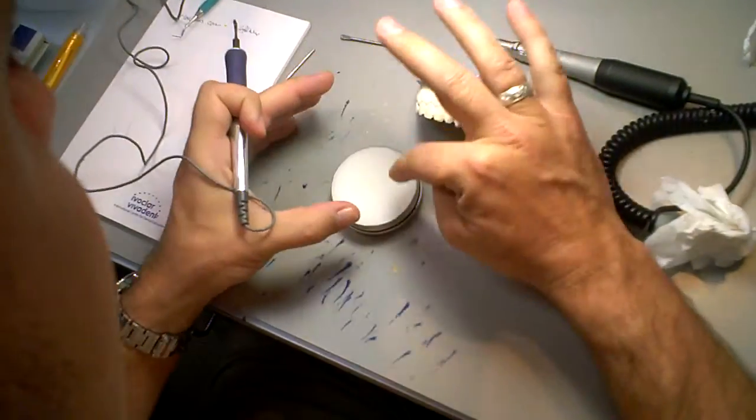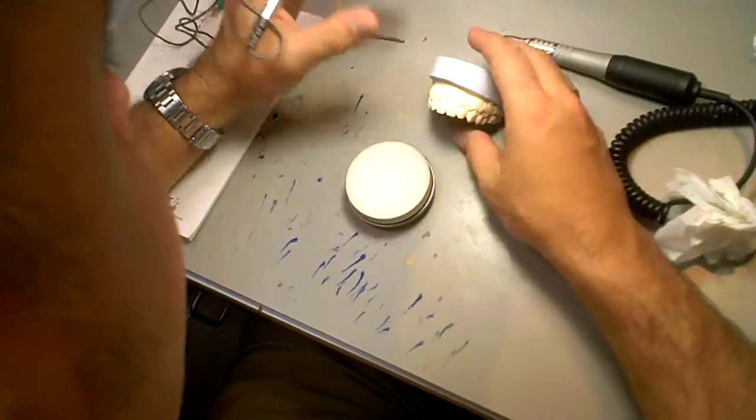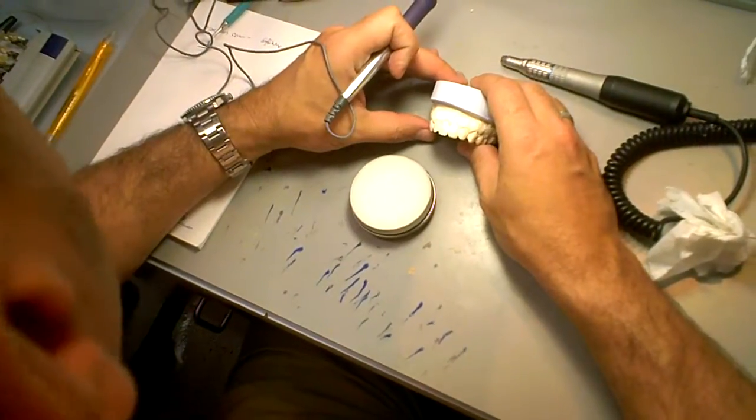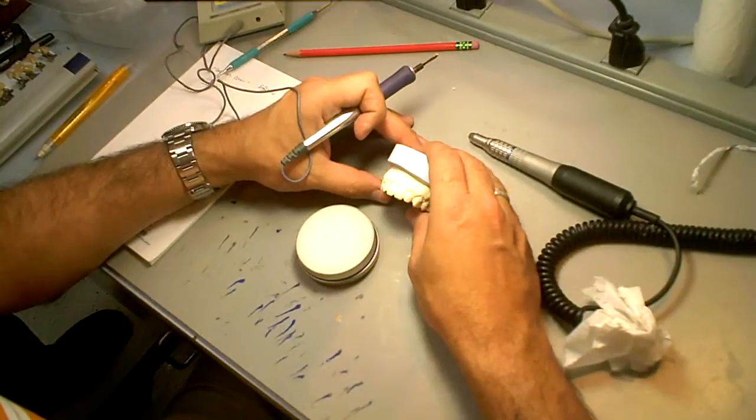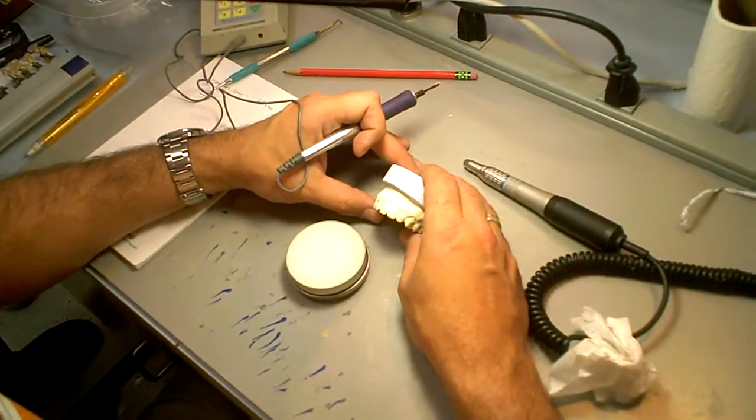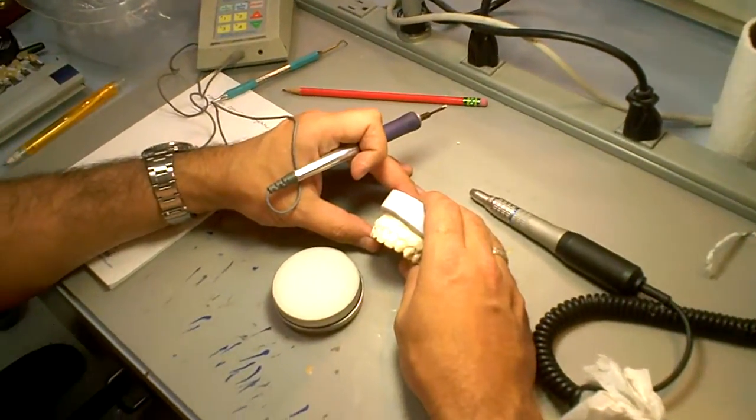This little tip here. I like this wax because it's white. When I do my diagnostic wax-ups, I used to do it when I went to LVI with color wax, like brown or gray, because you see texture. But if you show that to a patient, they don't like it.